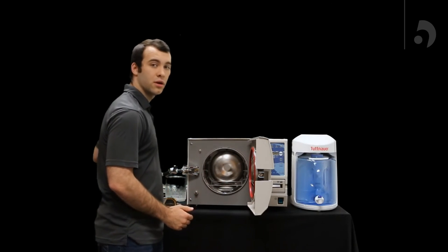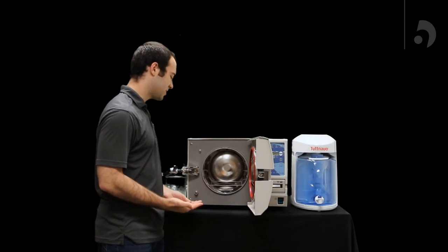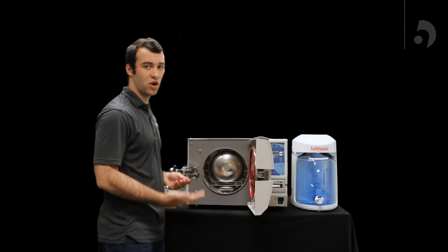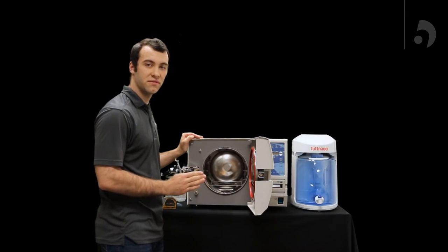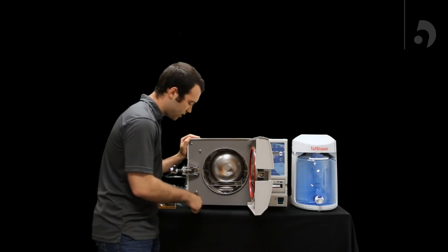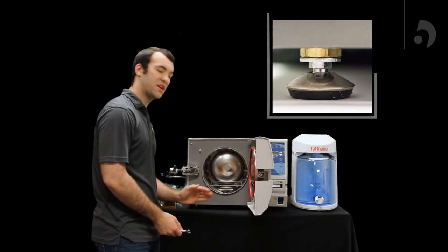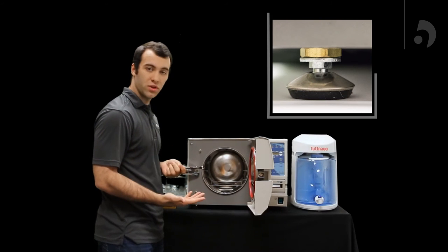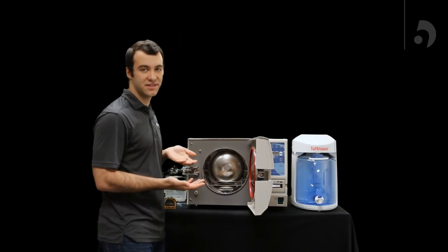Now, most of the time, your unit will be fine straight from factory settings. But if something is up and your pitch is off, what you can do is lift the front of your unit up a little bit by adjusting the feet. So with the wrench and the bottom nut on here, you're going to turn it on both sides until it is raised just enough that your water is sitting right behind your line. Once that's good to go, your pitch is all set, and you'll know your water can fit inside your chamber.